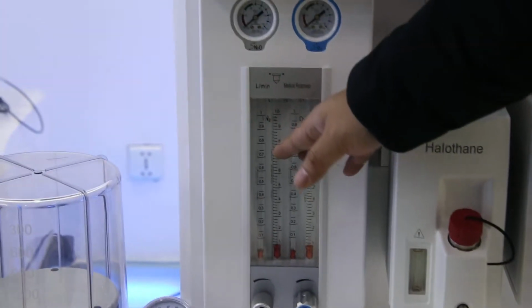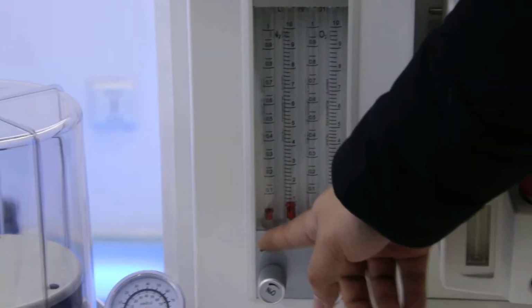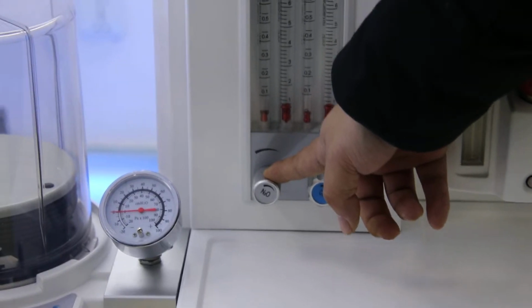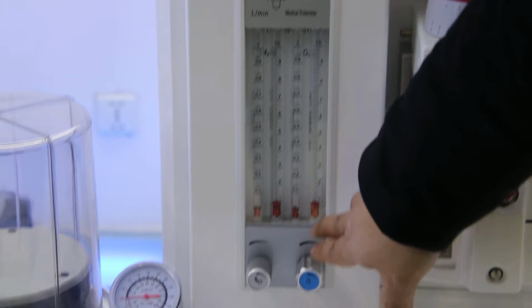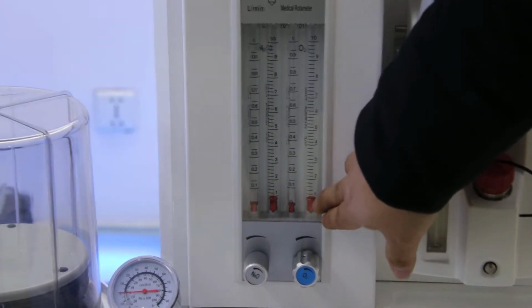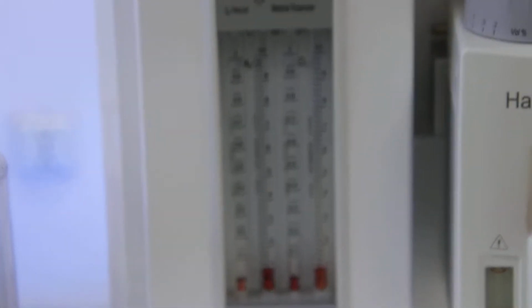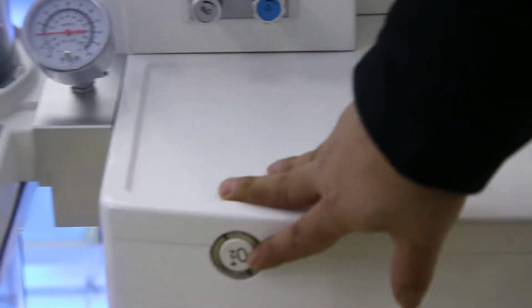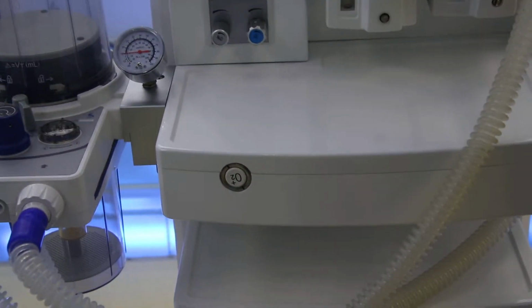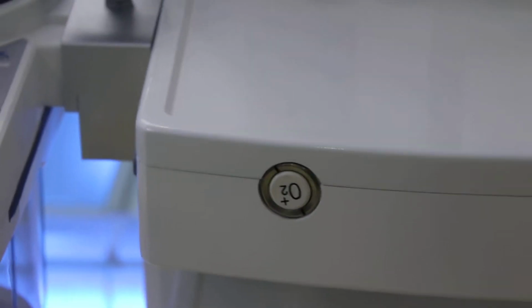And here we see the flow meters. As I mentioned, we can choose oxygen, which we must have. For the nitrous oxide, we can change it to air. But no matter which gas source, there are two tubes for each. You can see each one is from 0.1 to 1 and also 1 to 10. It ensures you can set the parameters very accurately. And here is the rapid oxygen supply. This button is usually used in some emergency situations, or after the patient use, when we need to recover the patient soon.